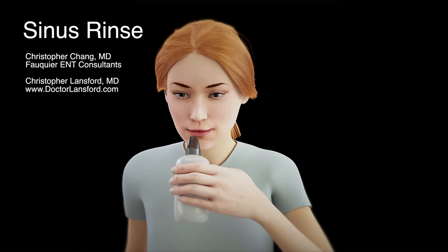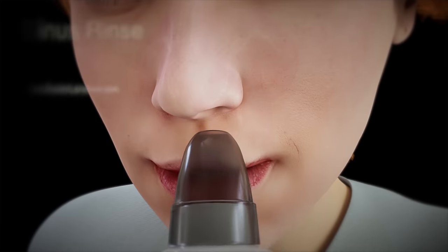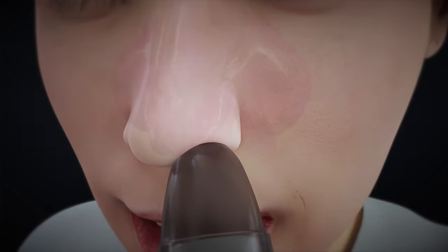Performing a sinus rinse is a safe and simple way to clean the nose and sinuses for patients who suffer from allergies or recurrent sinus infections.